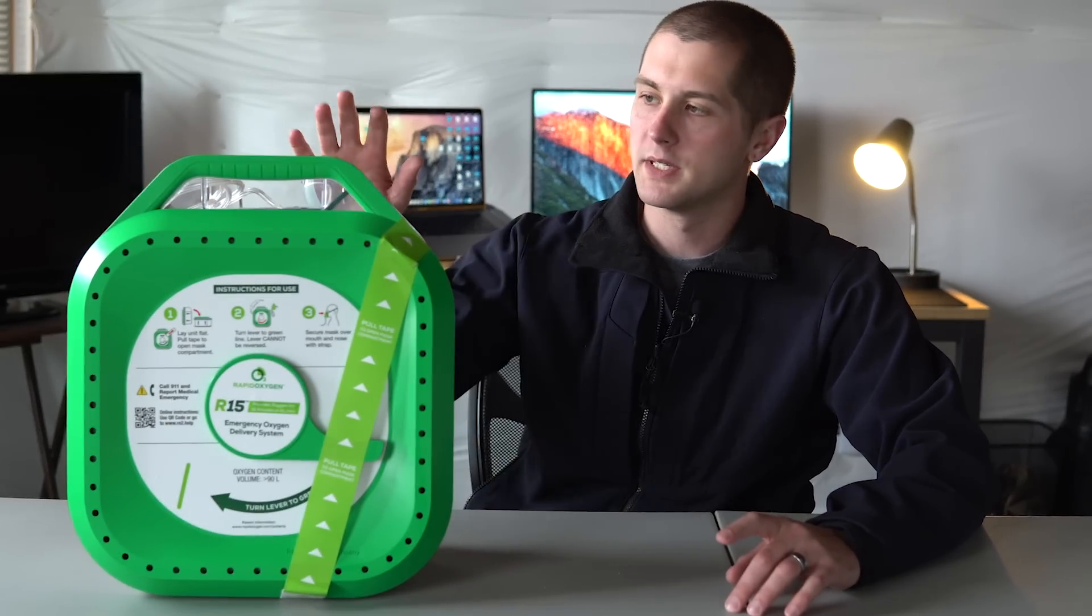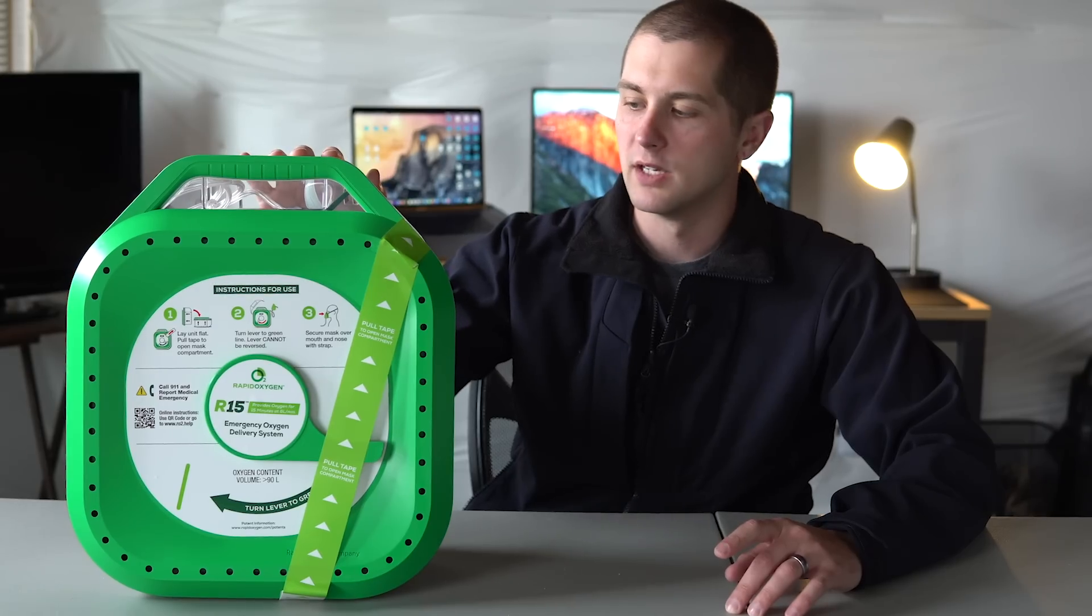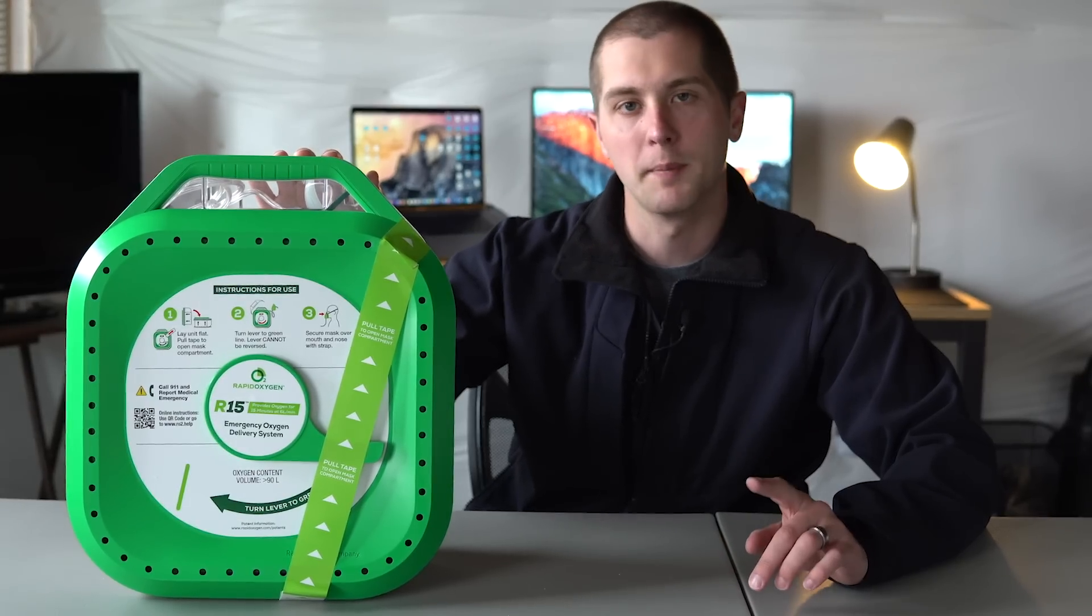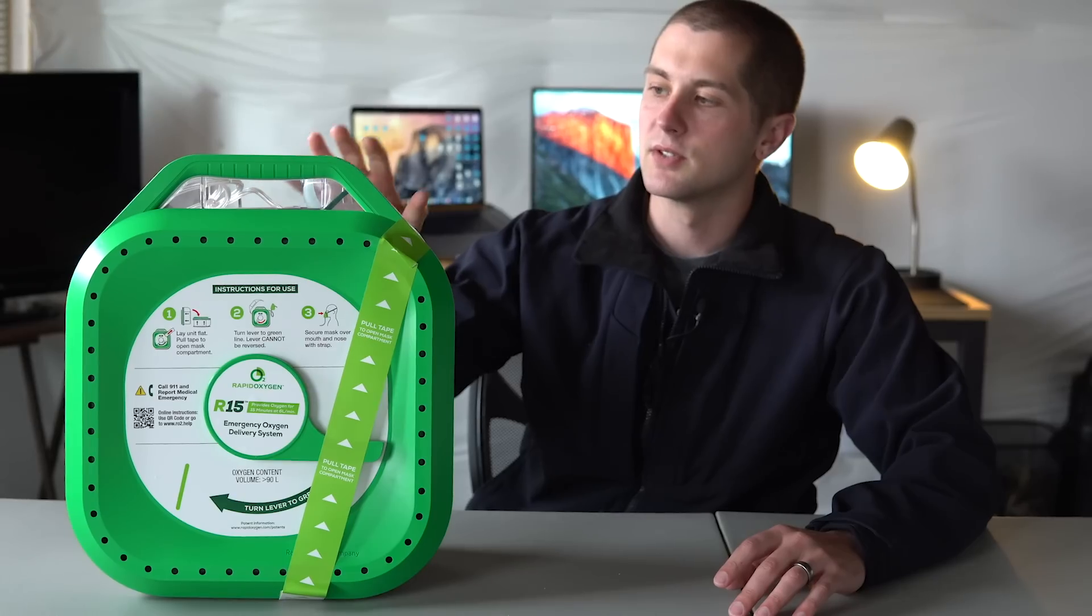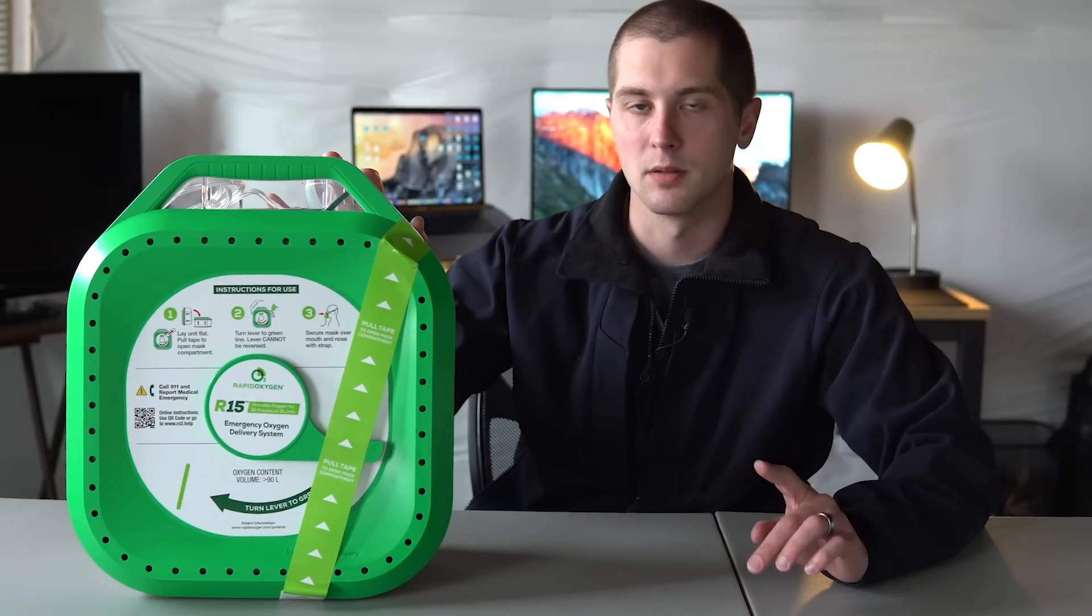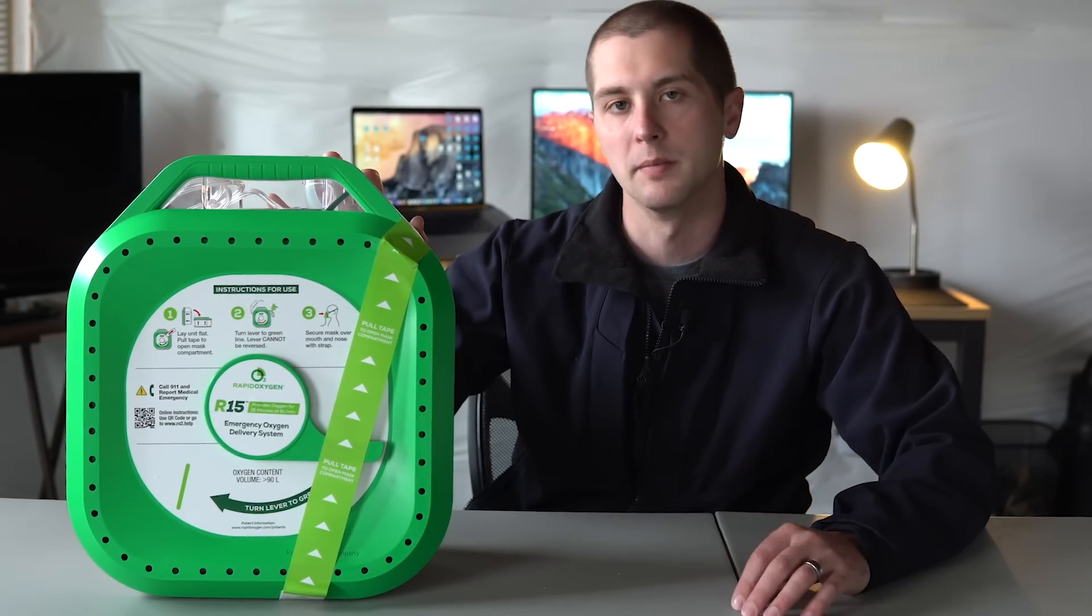Hey guys, my name's Sam and welcome back to Pratt Medic. In this week's video, we're going to be taking a look at the R15, which is a device from a company called Rapid Oxygen that aims to give civilians the ability to provide oxygen to patients in the pre-hospital setting prior to EMS arrival.